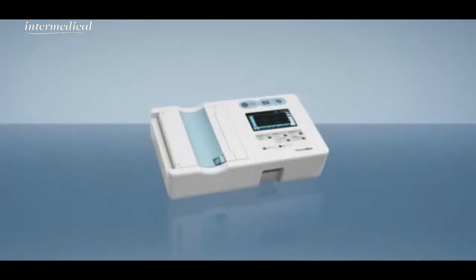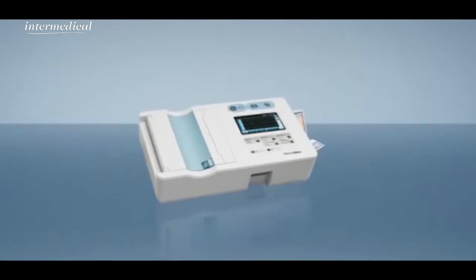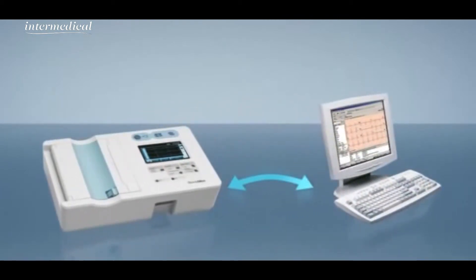Finally, the CP50 gives you state-of-the-art connectivity options. Transfer patient data to and from the Welch Allen Cardioperfect workstation and manage your cardiopulmonary data with paperless efficiency.